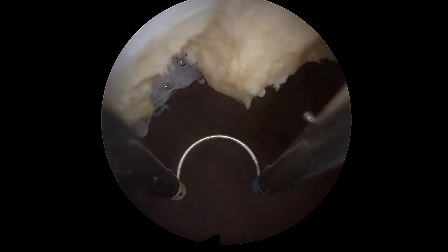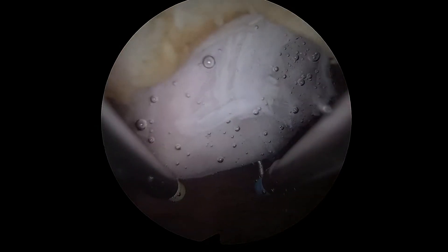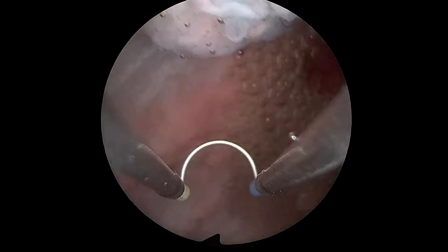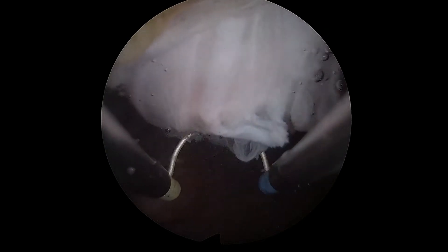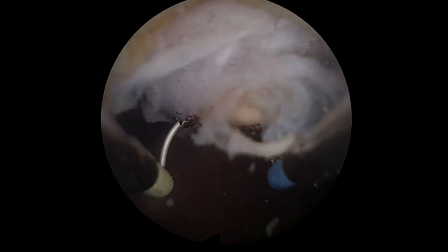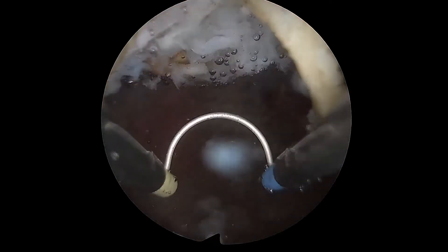As with all Gynosim's real tissue models, this model provides the most realistic simulation training and opportunity for repetitive practice of challenging procedures such as hysteroscopic resection of fibroids and polyps, global endometrial resection, or ablation.